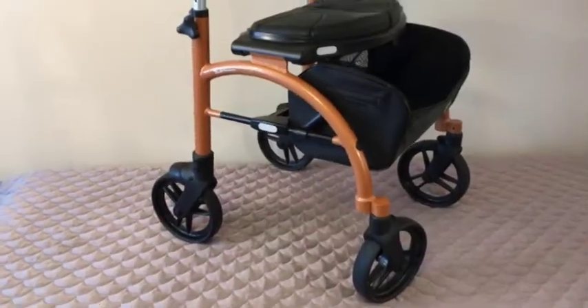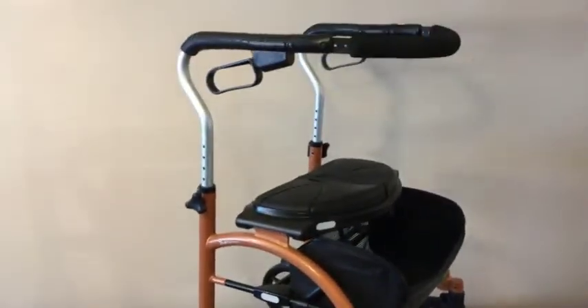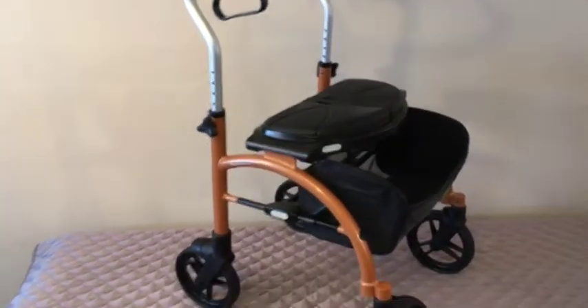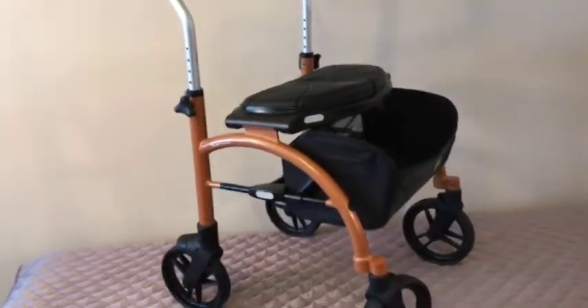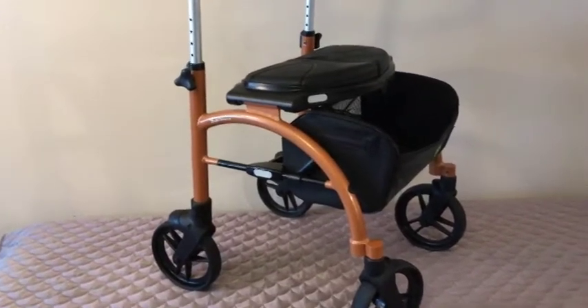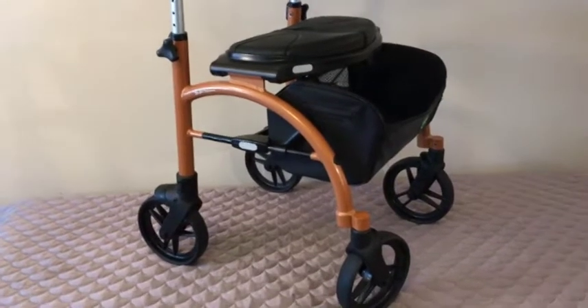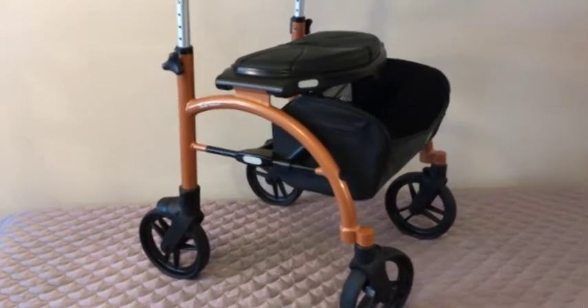A rare chance to have a large size Espresso rollator. If you folks are in the rollator market, meaning you've been looking around for one, you know that the Espresso is the top of the pile — brake-free or cable-free brake design, super solid frame, and this one is built for a little larger user.